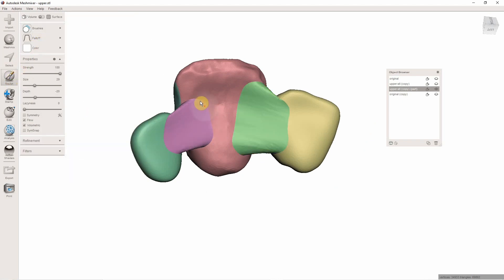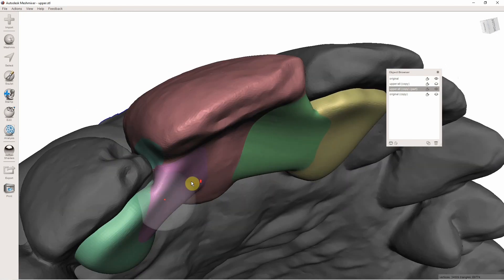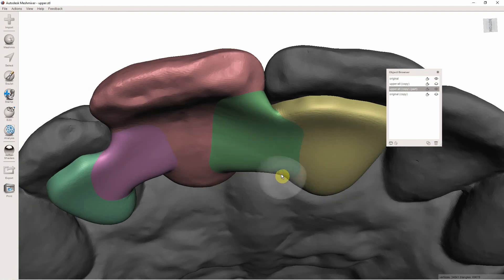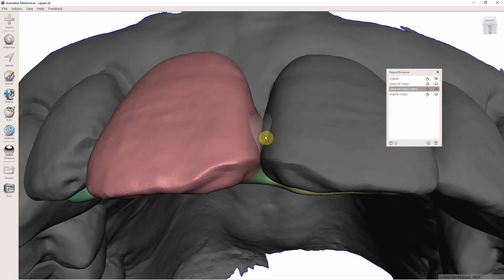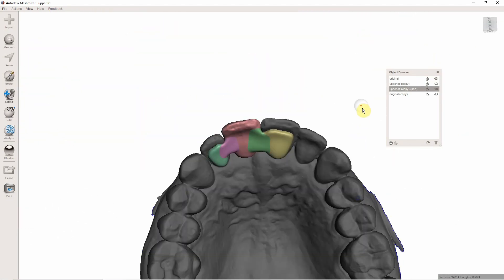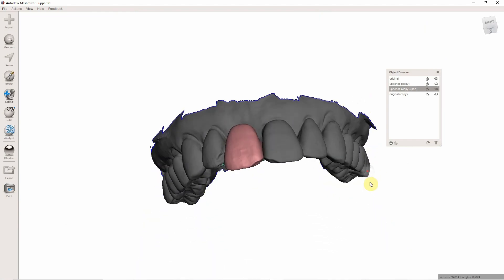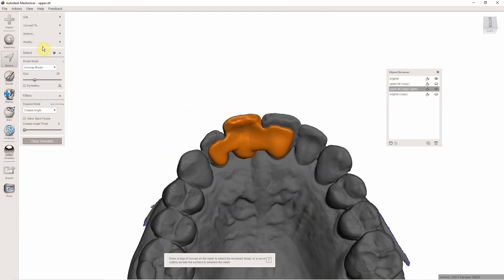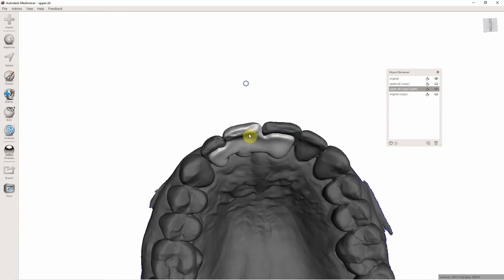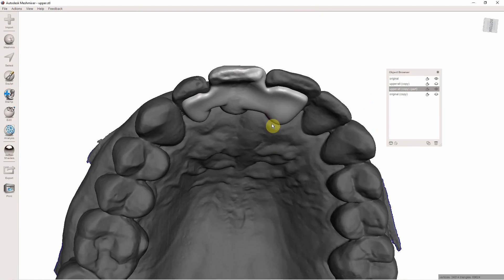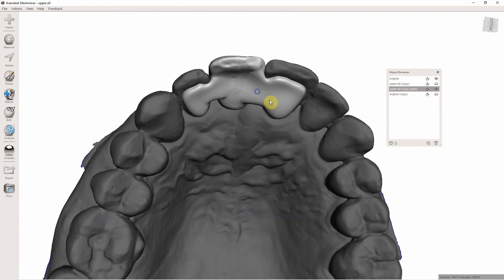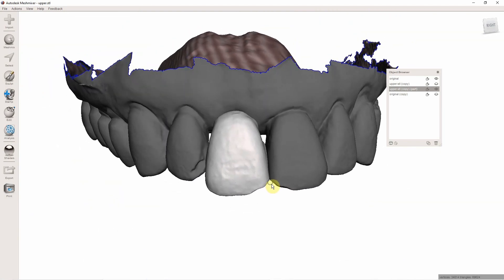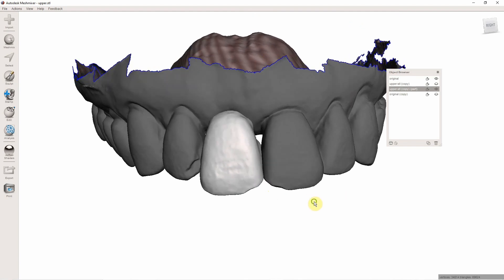And then you could come in here and go to your Sculpt Brushes, Robust Smooth, and just kind of smooth those connectors like that. So now if I turn on my original model, I could see - and you want to make sure - that you have no penetrations of the connector through the tooth, and everything is just absolutely beautiful. And so I will go ahead now and go to Control A and go to Modify, Clear Face Groups, so you guys could see what it's looking like right here. There's a number of different ways to do this. This is the way I do it. It usually takes a minute or two when I'm not teaching. I hope this helps.